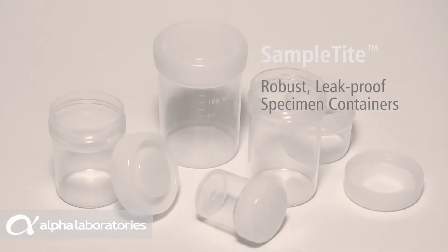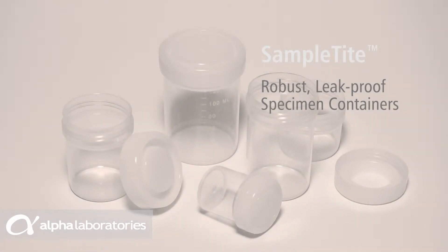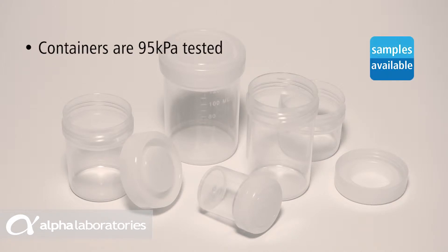SampleTite containers are ideal for secure collection of clinical specimens and their transportation to diagnostic labs for further analysis. The containers are 95 kPa tested and meet UN3373 standard requirements for a primary receptacle.